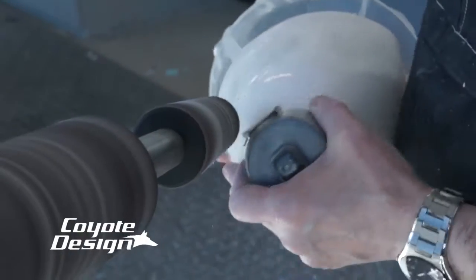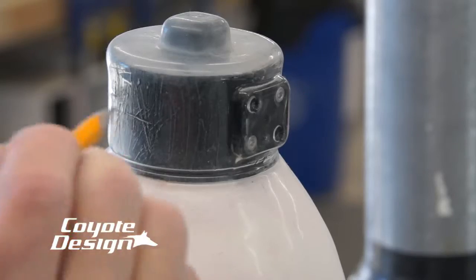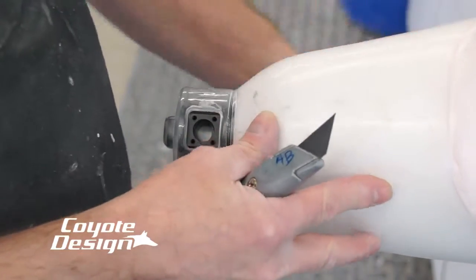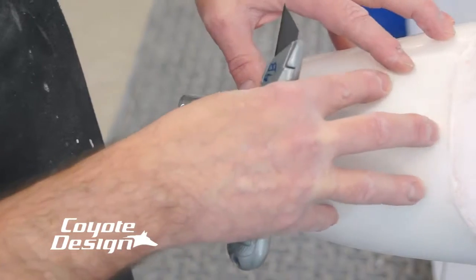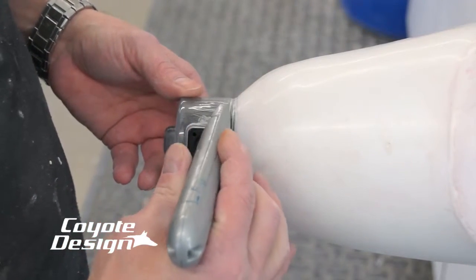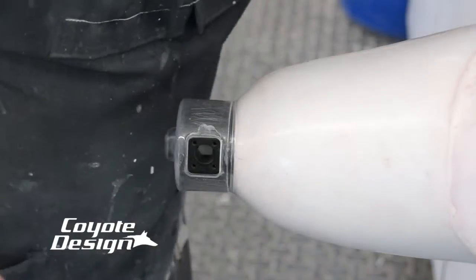So what we'll do — I'll sand this, I'll pop out my screws, I'll take my tooling piece out, I'll cut it, get it nice and loose, and pull that plastic off of my lock. Now I've got a utility knife, brand new blade, nice and sharp. Typically when you're doing this surlin inner, you don't have a big thick inner piece right here. It's relatively thin — eighth inch, sixteenth inch, it's not real heavy — so a utility knife will cut this fairly easy. You could use a cast saw, but you really want to be careful that you don't cut into your lock and how you cut around that ring.